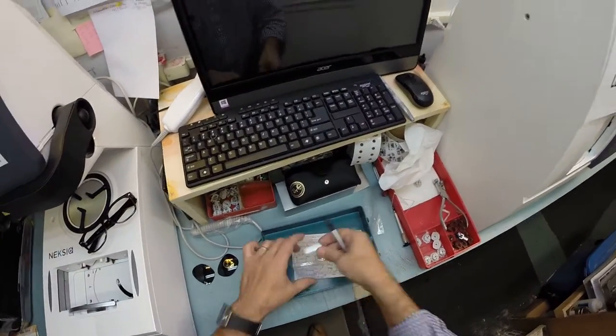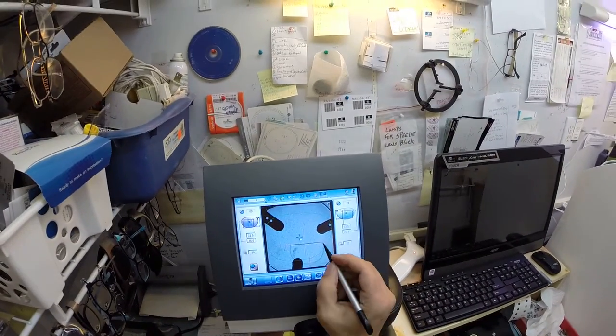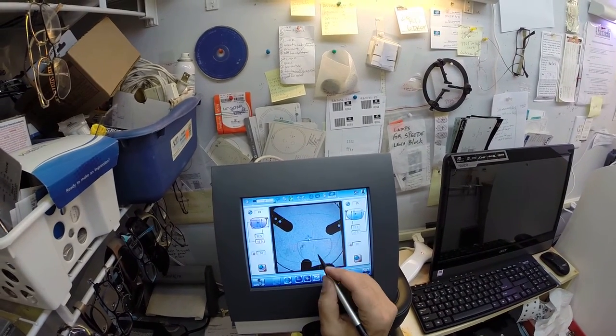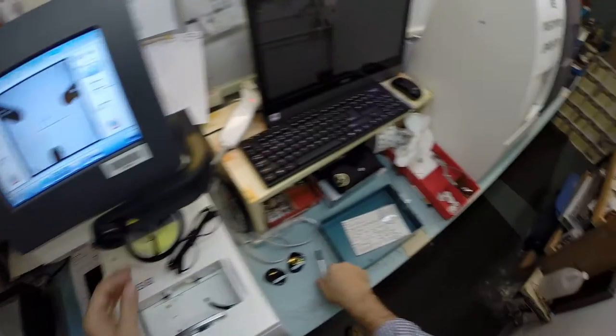I'm going to take your right lens. Let me just double check. Yep, that is the inset. That is your right lens and I'm going to put the corners of your bifocal right here in between those lines and sitting flush on that line.